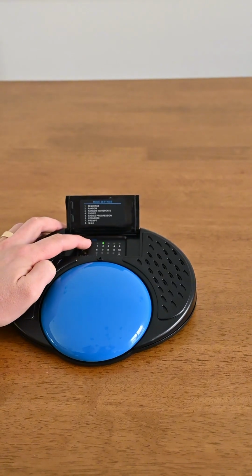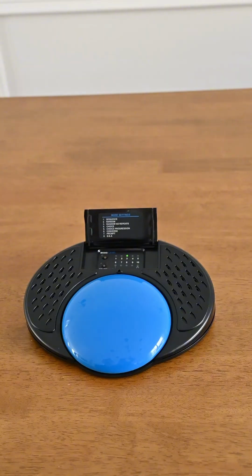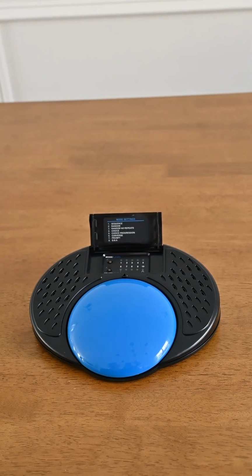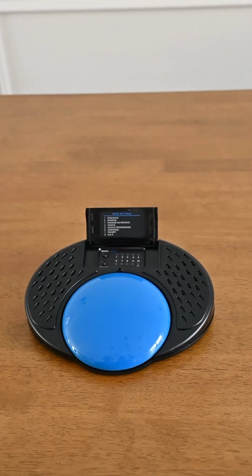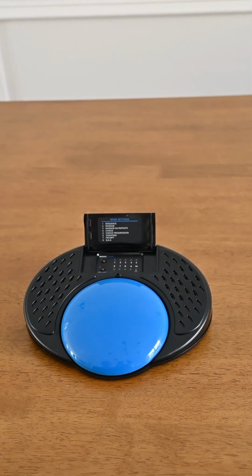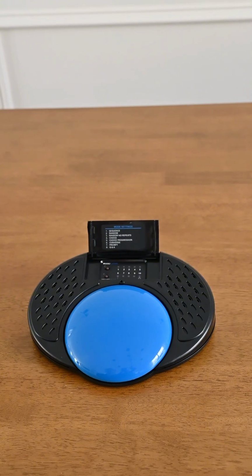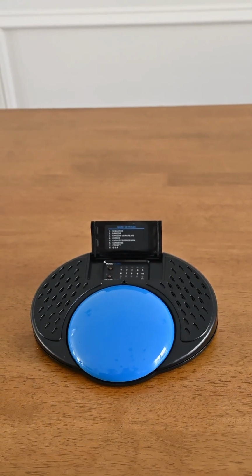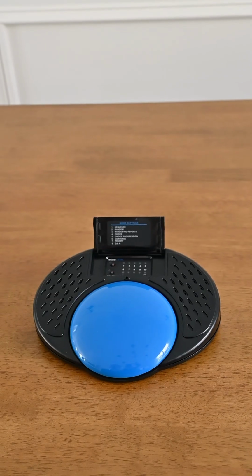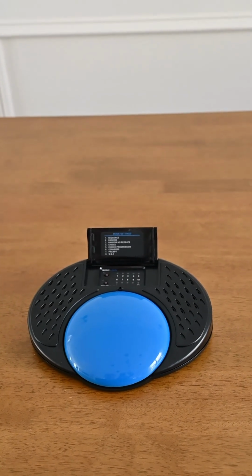Now we'll go to mode number 3, which is random no repeats. This is very similar to random mode, except once a message has been played back to us, it eliminates it from the list of potential messages to be played back again. So this is great if you have a list of, say, 6 students' names and you want them to be selected in a certain order, but you don't want the same name to come up twice.